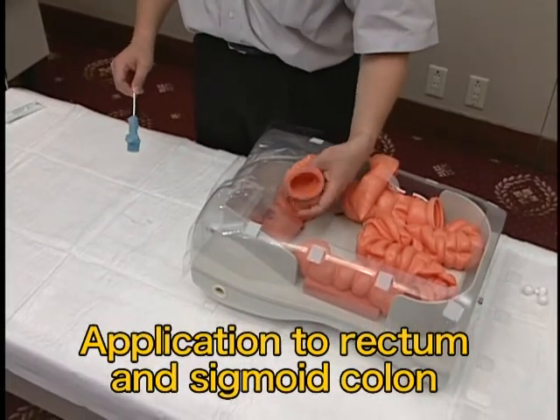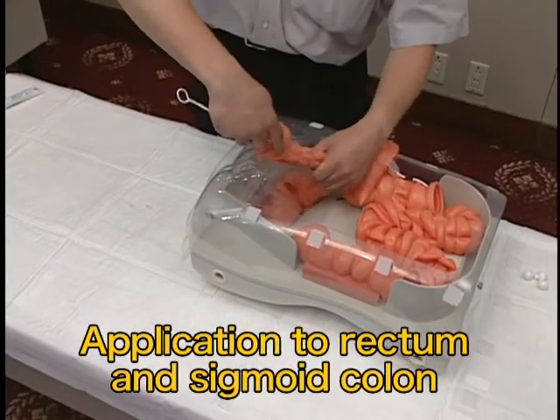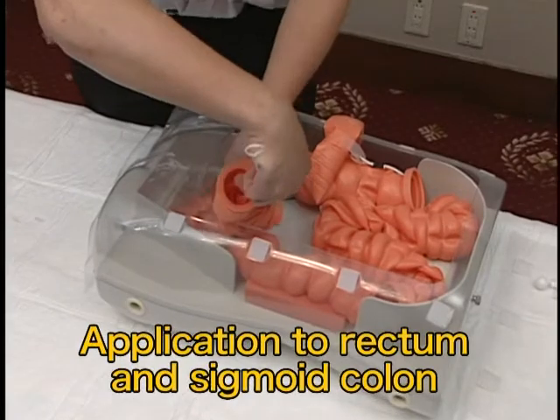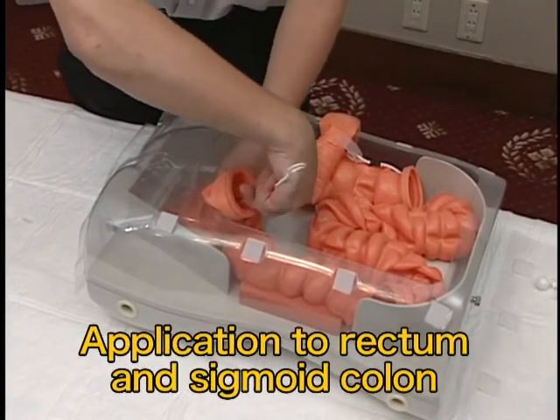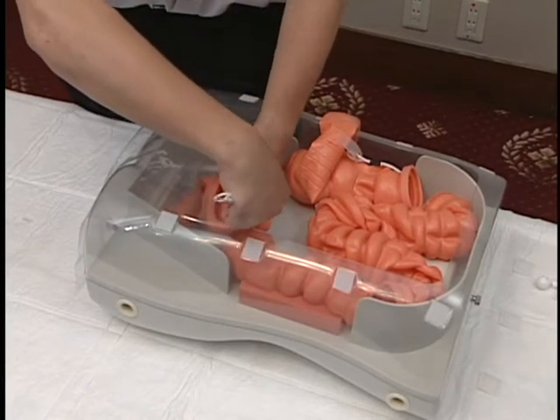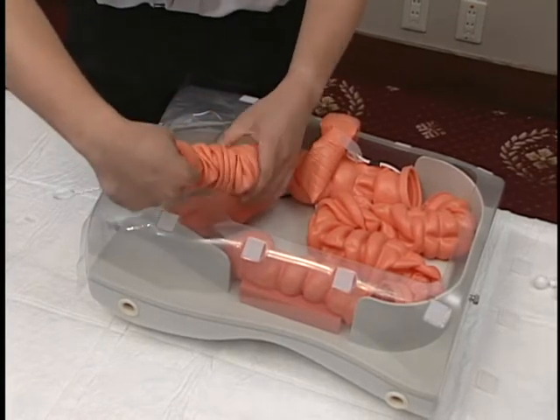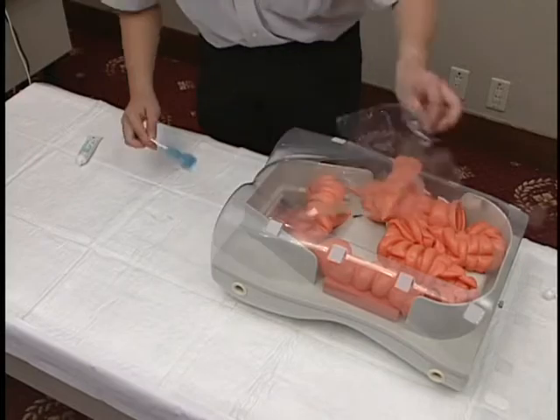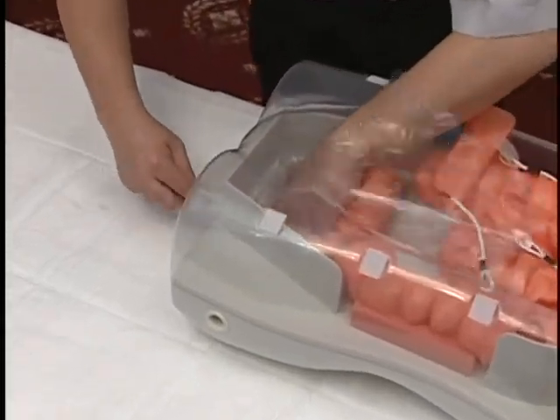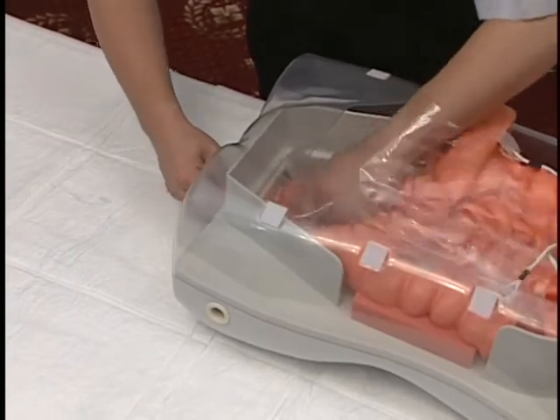Apply by inserting the sponge with lubricating jelly from the sigmoid colon side to near the rectum. Withdraw the sponge little by little while massaging the intestine so that lubricating jelly is spread over the entire intestine. Insert the sponge with lubricating jelly from the anal side and massage the intestine well so that the lubricating jelly is spread over the rectal area.